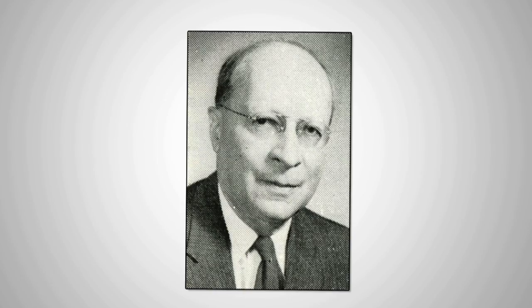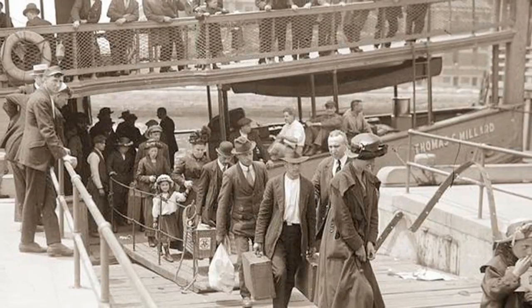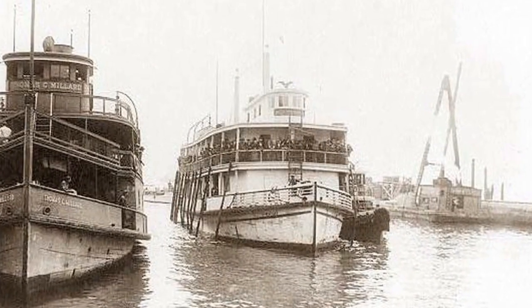It was bought by a young Jewish doctor named Erhard Weltman, who practiced medicine in a small town in northeastern Germany. In 1937, Dr. Weltman fled Nazi Germany and immigrated to the United States, bringing his x-ray machine with him on a boat across the Atlantic Ocean.